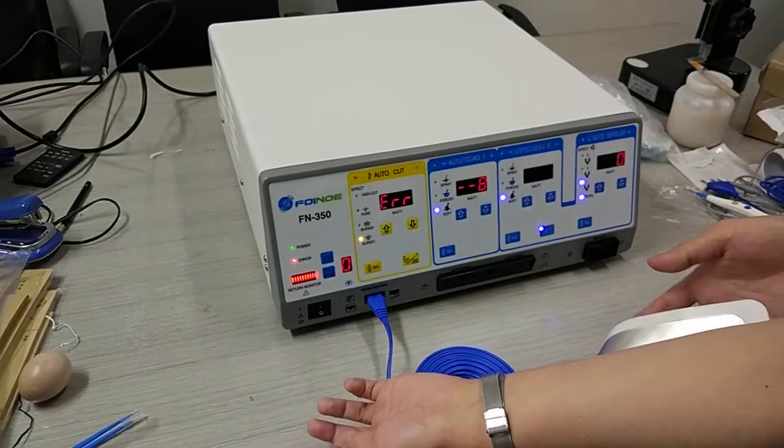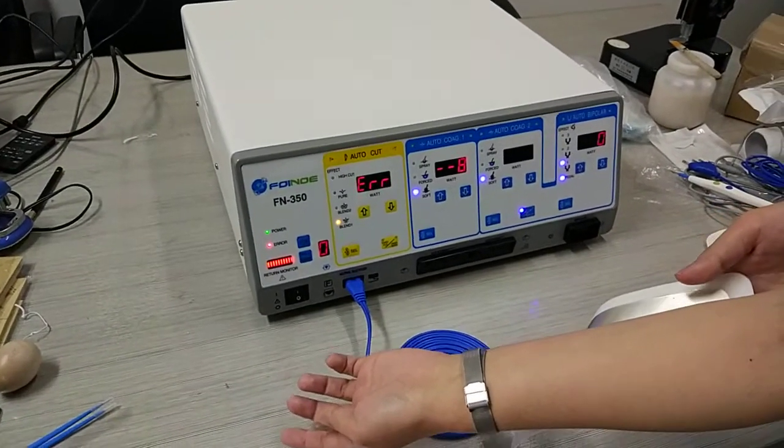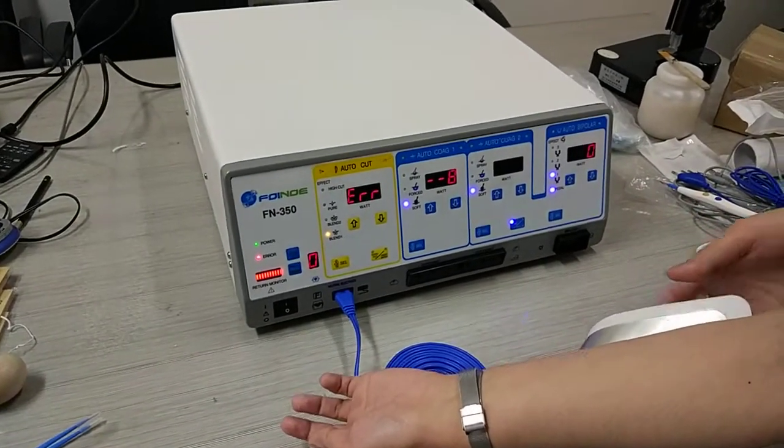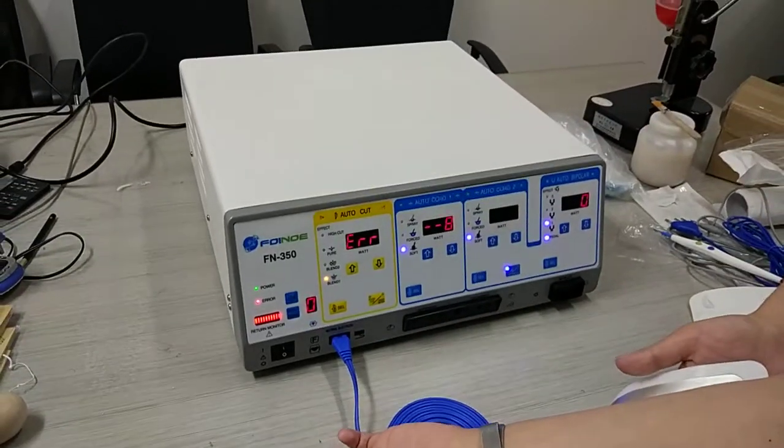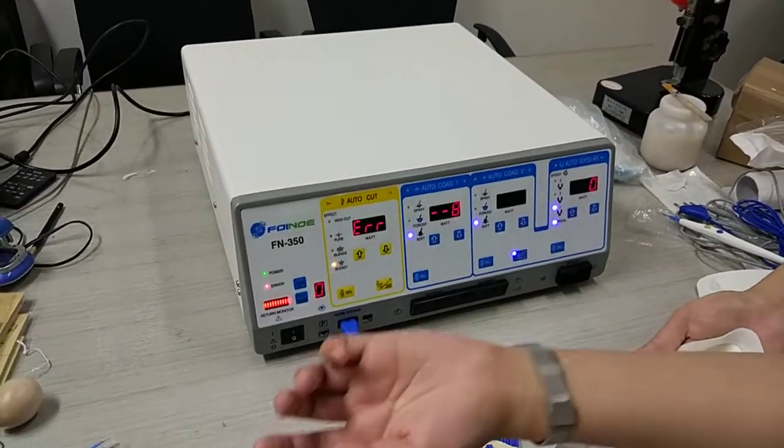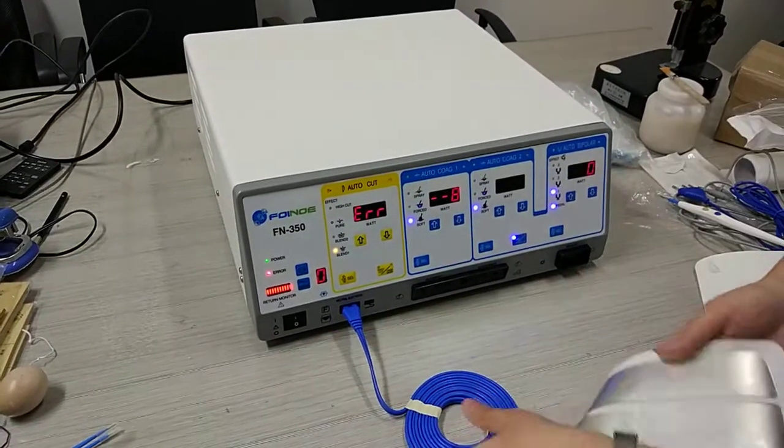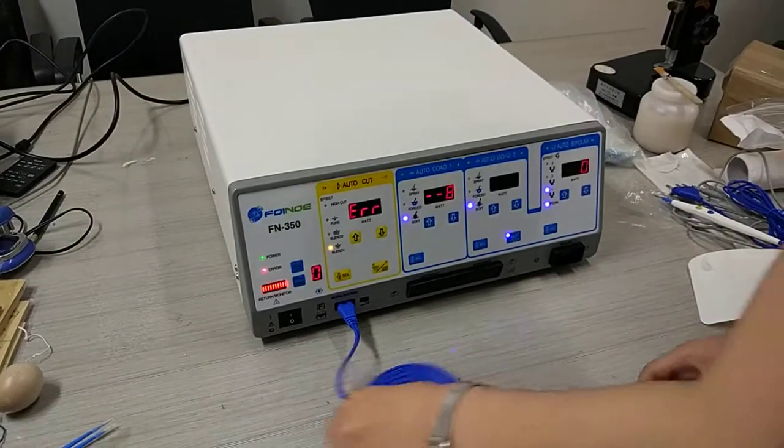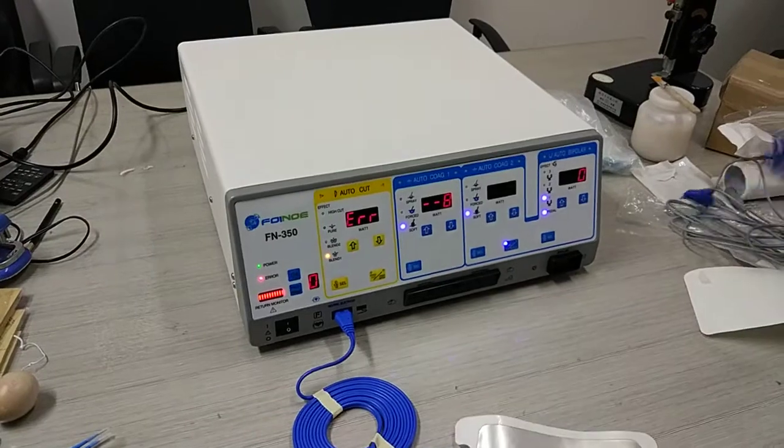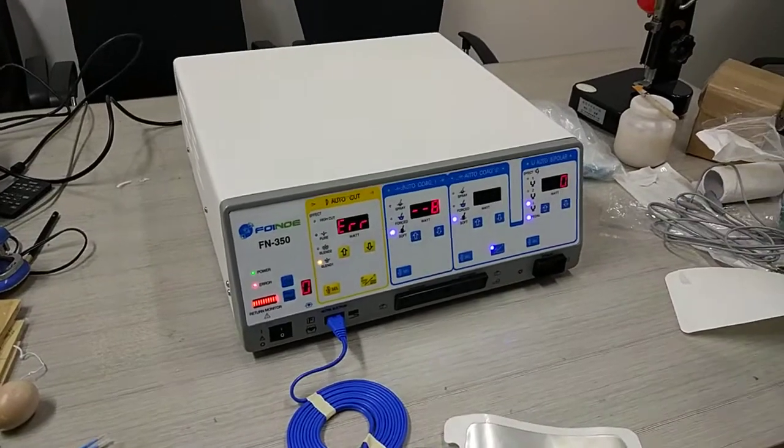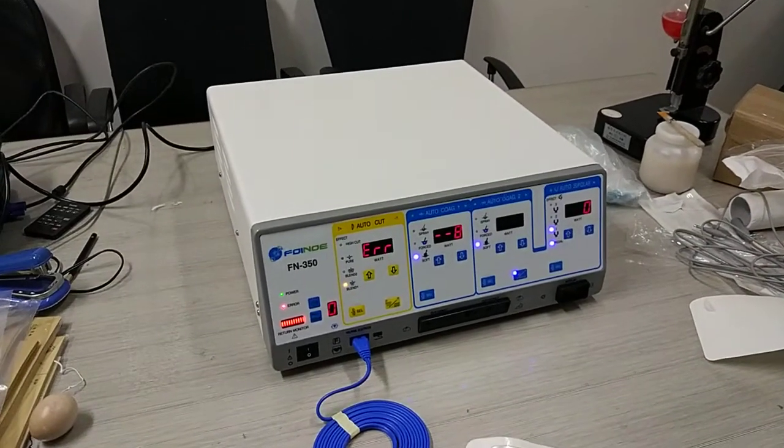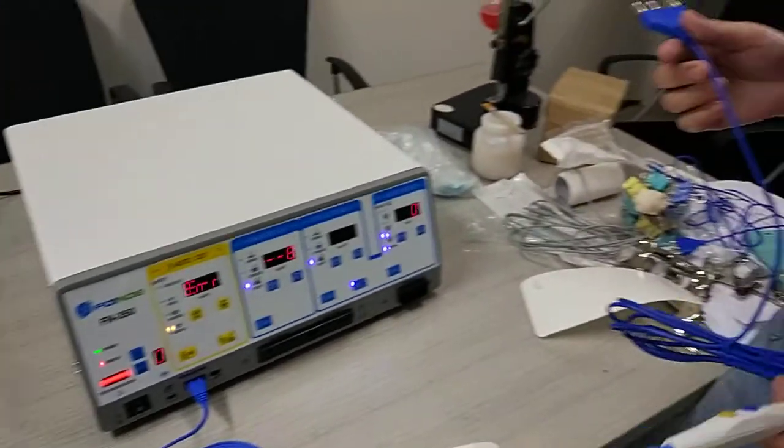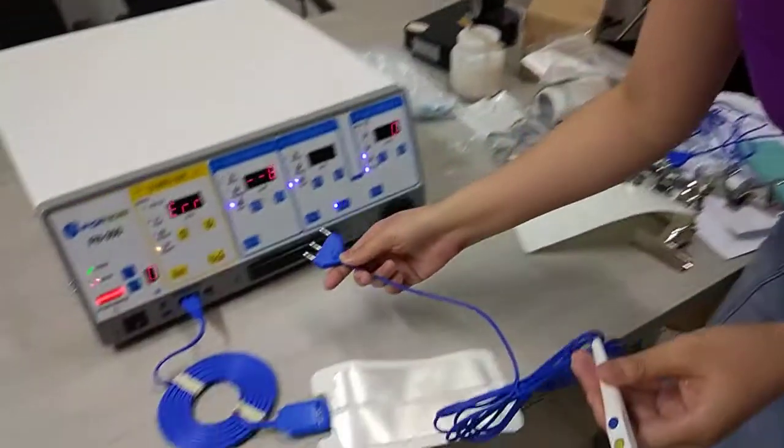One half has fallen from the patient. The machine will stop working. We try to connect the monopolar pencil. It's here.